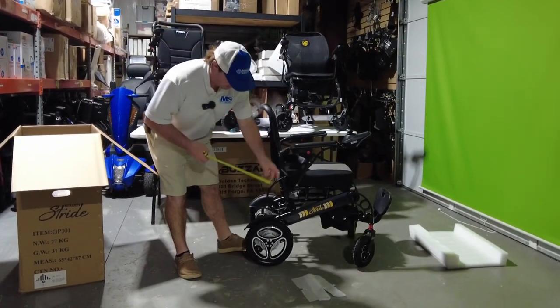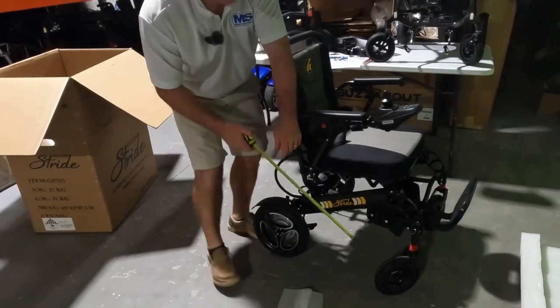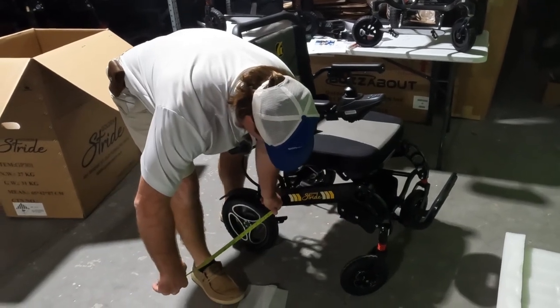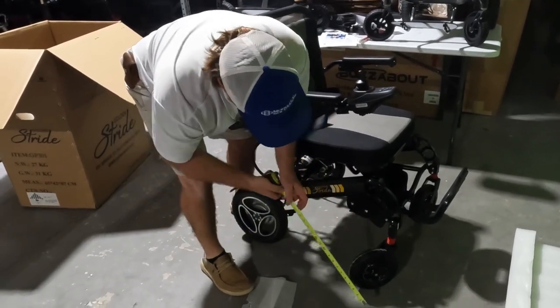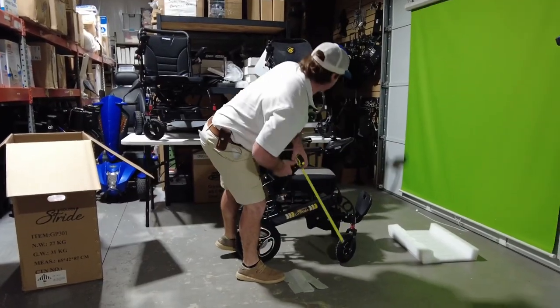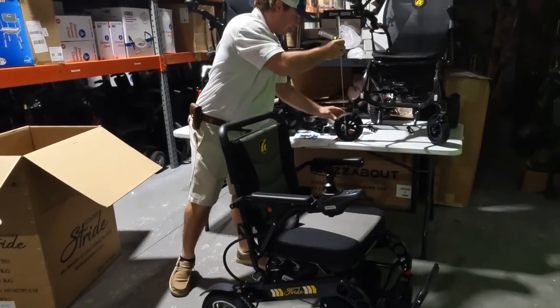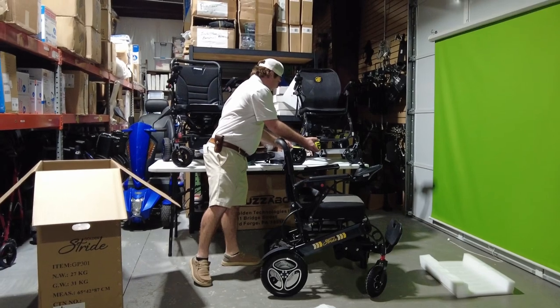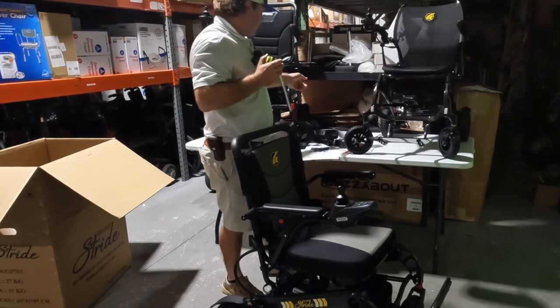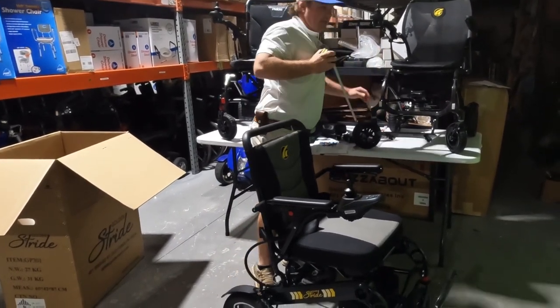Big difference in the tires — they're about 11 inches, pretty wide. The front's about 2 inches, the back one's about 2 inches. The front tire has spring shocks and it's a little over 7 inches. For the cricket, it's a little bit less than 7, about an inch and a half in width. The carbon's wheels seem to be a little bit bigger, or about the same — they're both about 8 inches at the back.